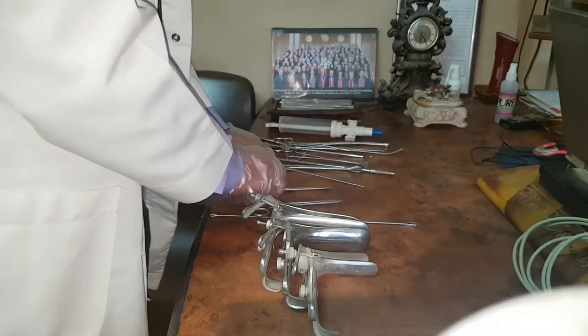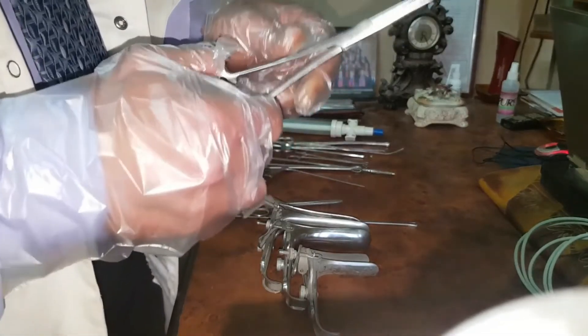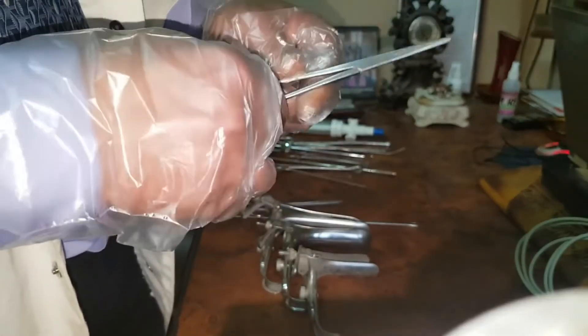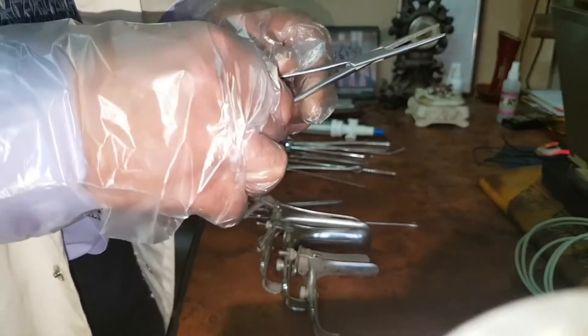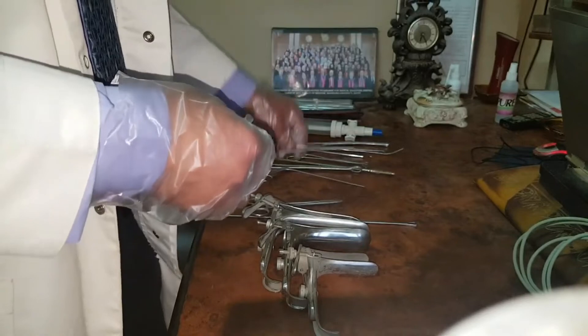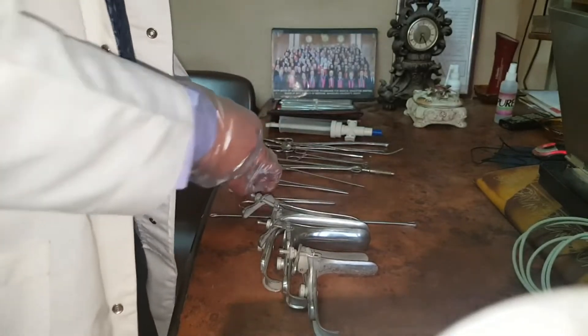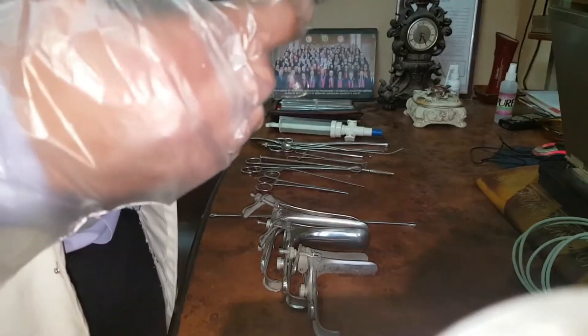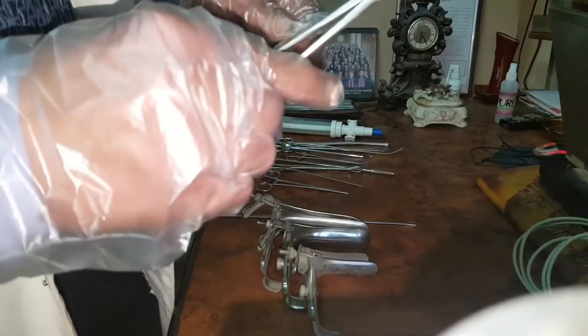This is an artery forceps used for hemostasis. In case of a spurting vessel, you can close the artery forceps over it for hemostasis, and also for holding tissue during surgery. This is the needle holder. We put the needle here for surgical suturing. Very short blades, as you can see — this is called a needle holder.